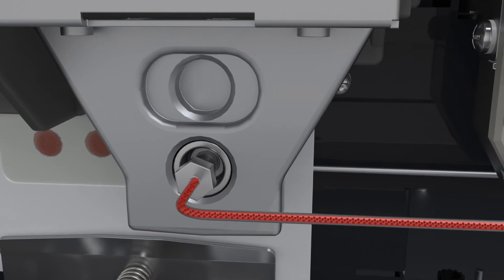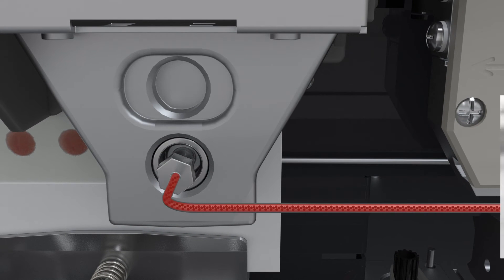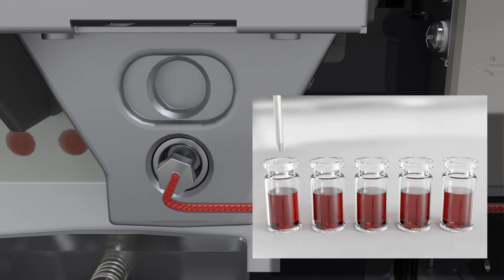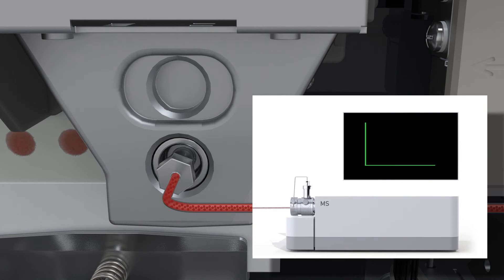Carrying the constituents of the clamped bloodspot to a sample collection device, or directly into a UHPLC-MS system with optional online solid phase extraction for additional cleanup.